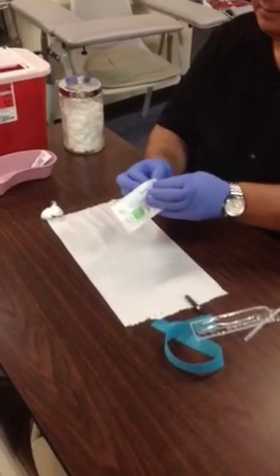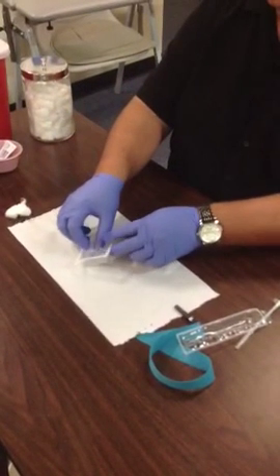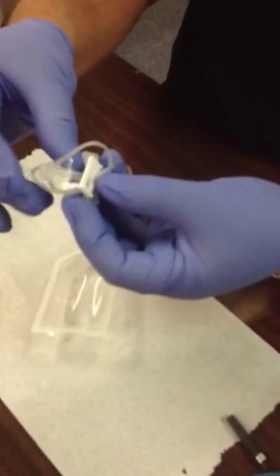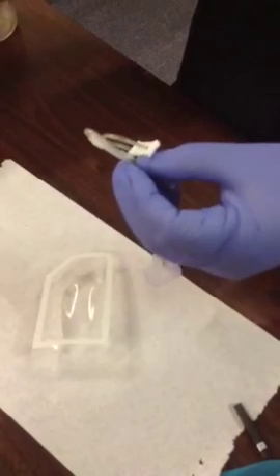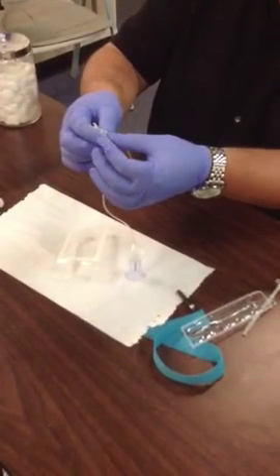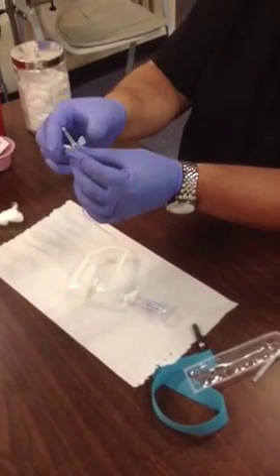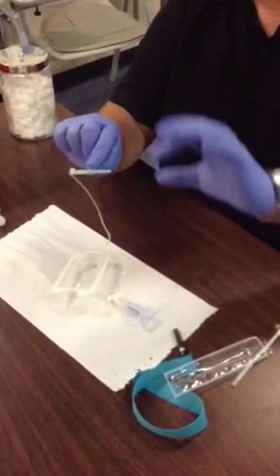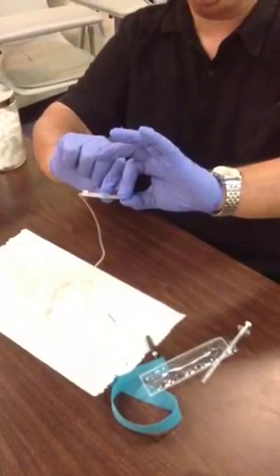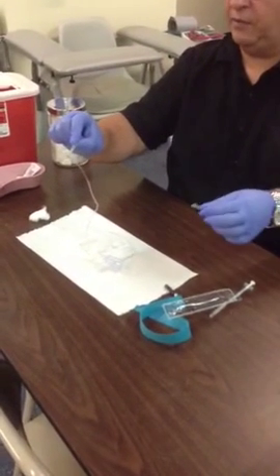Moving on to the butterfly needle. Butterfly needles can really lead to accidental injury. You'll notice if you look closely there's a little plastic band across — always take that off first, throw it in the trash, and then loosen and unkink the line. When you're ready to perform a procedure with the butterfly, grab the two wings with your thumb and index finger — you can use your dominant or non-dominant side. With the other hand, grab the cap and very quickly and deliberately separate hands. It's a deliberate separation so that you don't go back and stick your finger.